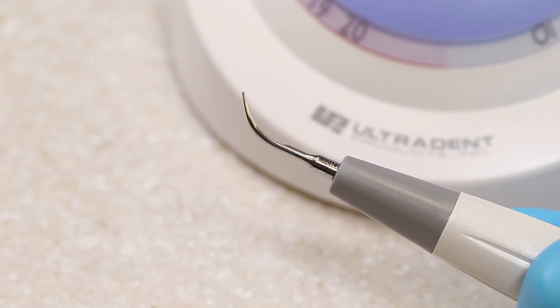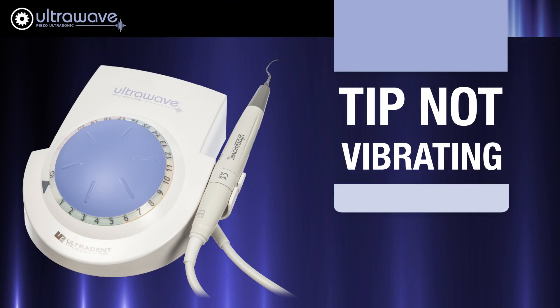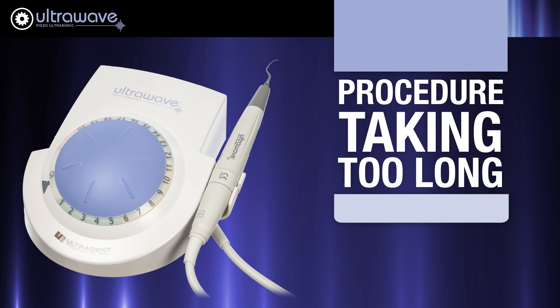If you find that your tip is not vibrating at the expected frequency or that treatment is taking longer than expected, the cause may be a worn or damaged tip.